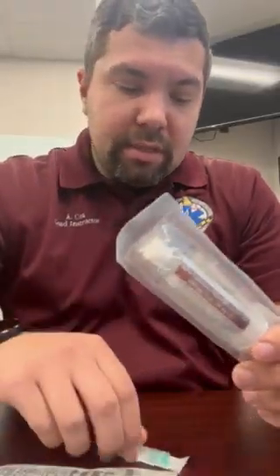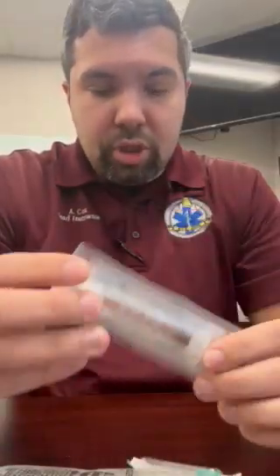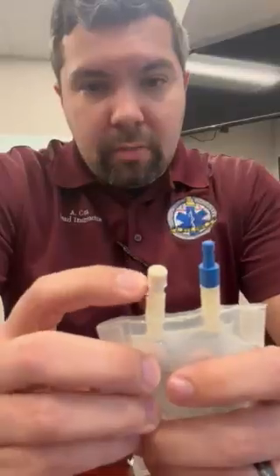So with this, obviously, it's going to have that luer lock right there at the top, and so you'll have to take one of our needles, either a blunt needle or a sharp needle, go ahead and attach it to this, and then make sure that we're putting it in the right port. And then you're going to use your pump to do this administration.